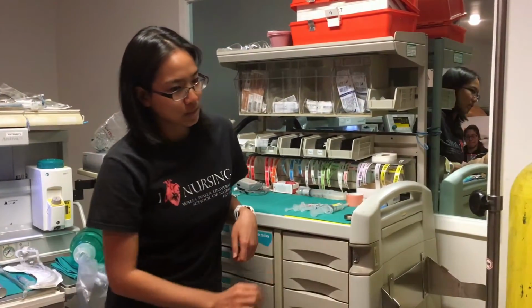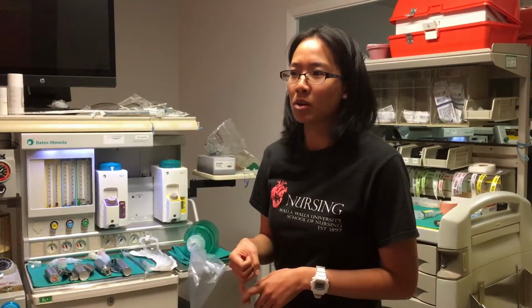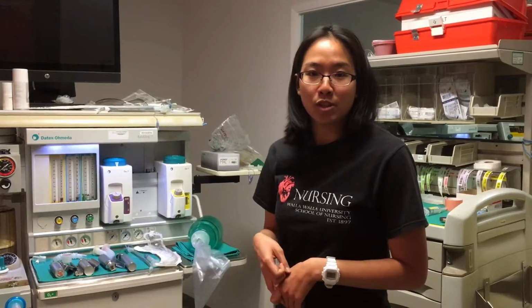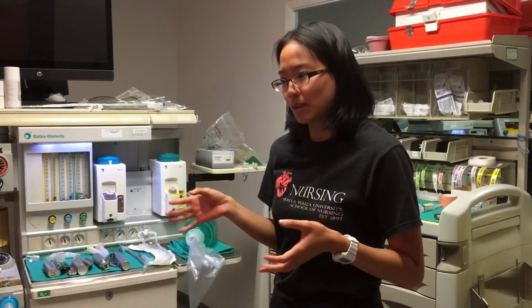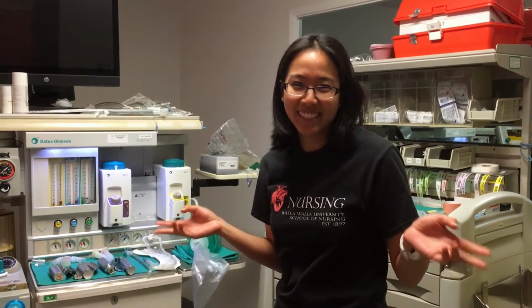The last S stands for special equipment. If you might be placing an A line in the patient or an OG tube, NG tube, that can also be some equipment that you have nearby. That's what you do to prepare the room before the patient comes in.